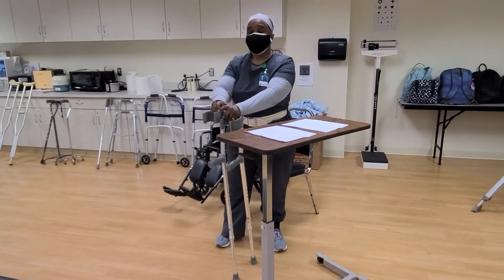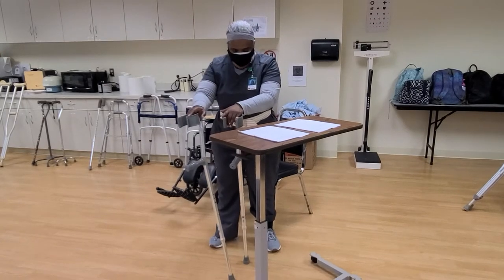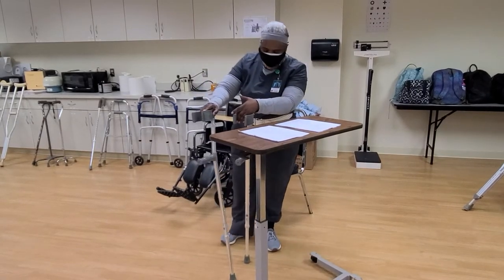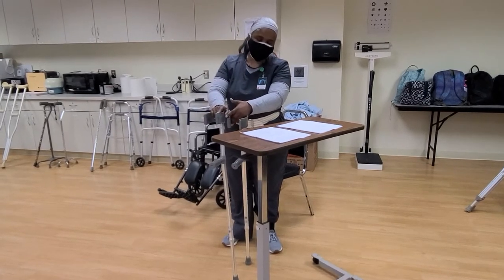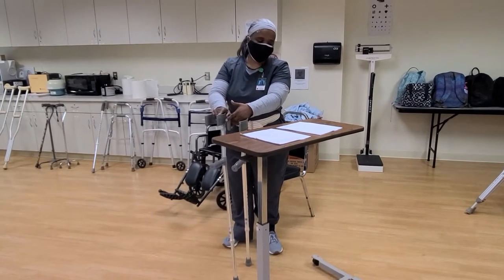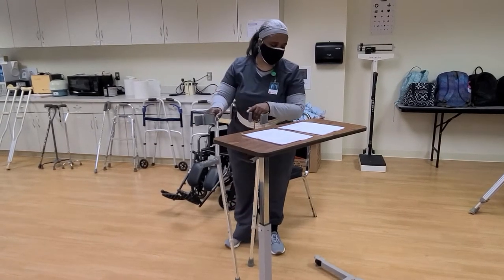If you can't use the crutches we just had, you can use this. This is for long-term use for someone who's either paralyzed, or someone who has cerebral palsy, multiple sclerosis (MS), or a spinal cord injury.